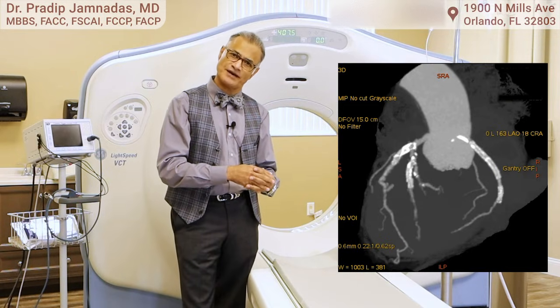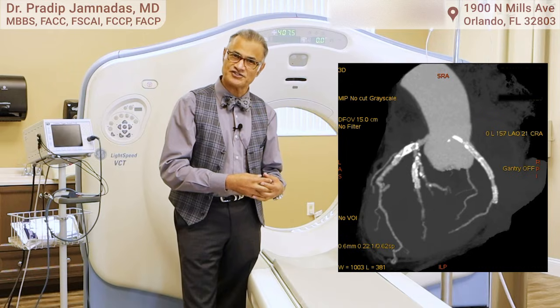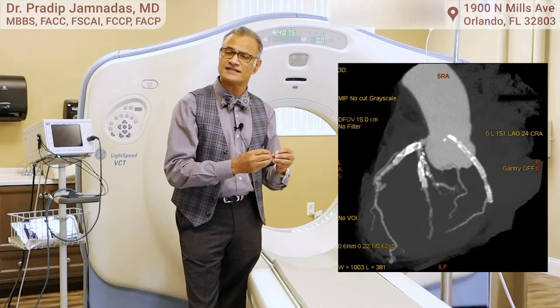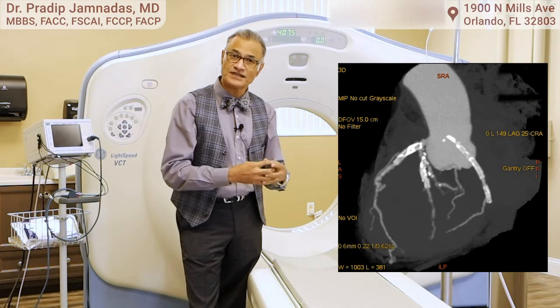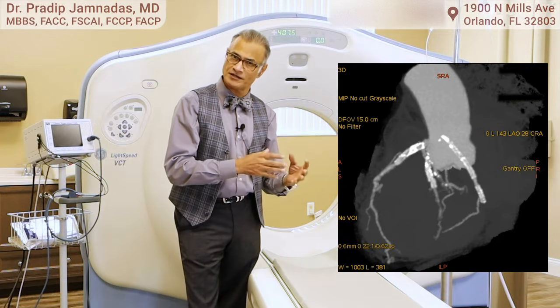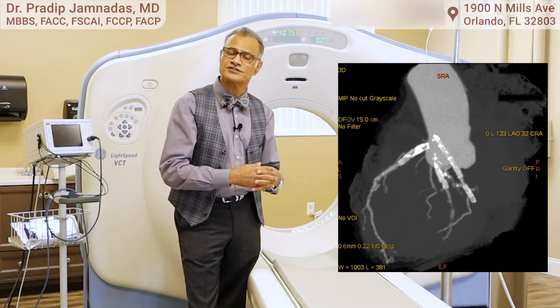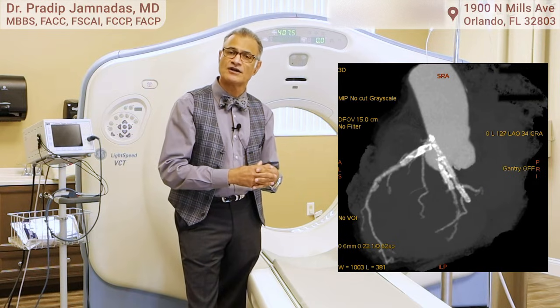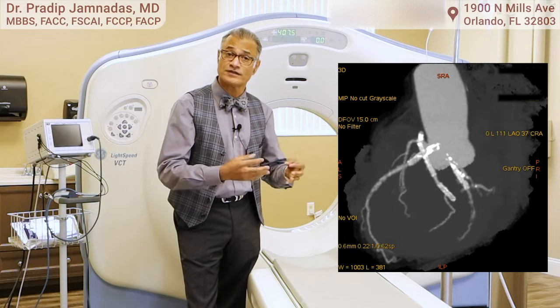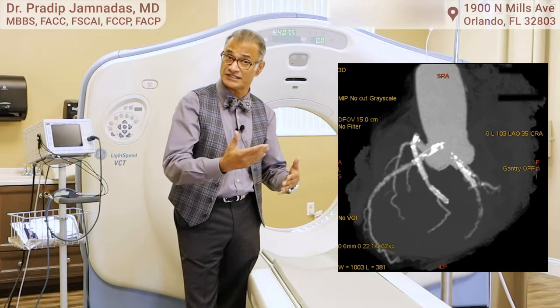This is called a CT angiogram — some call it a non-invasive cardiac catheterization. Today's technology allows us to see if there's any narrowing in those arteries. If there's a very extensive amount of calcium, it may be a little more difficult because of artifacts. But for most patients, we get a very good picture of what the arteries look like, whether there are any narrowings, and whether they're coming off in normal or abnormal areas, like in congenital disease.